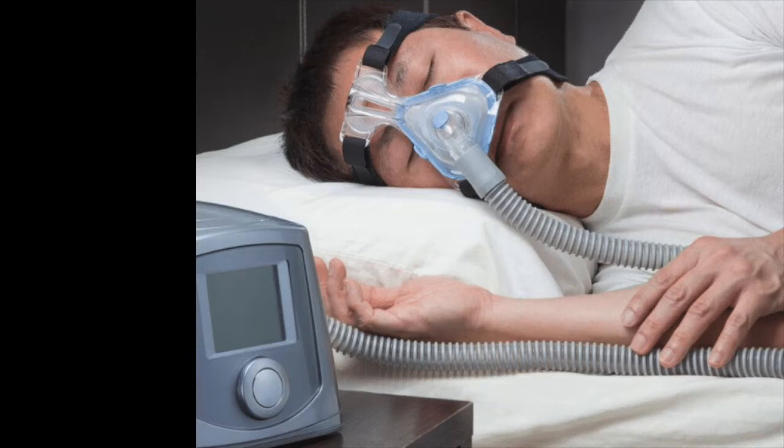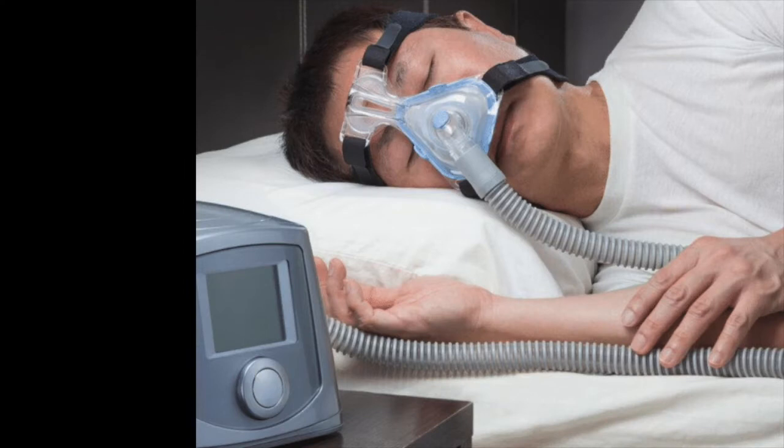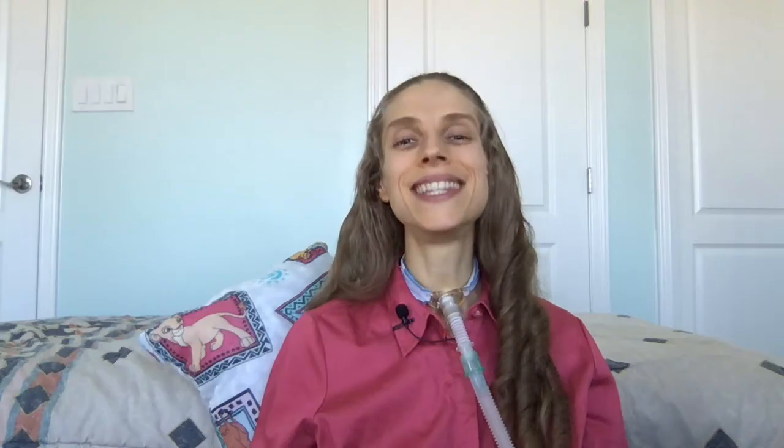One of the best things about non-invasive ventilation is that the only things needed are a mask and ventilator. The setup is easy — strap on a mask, turn on the ventilator, and breathe. If a person wants to disconnect from the ventilator, he simply turns off the machine and removes the mask.